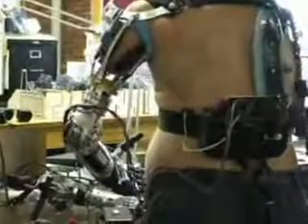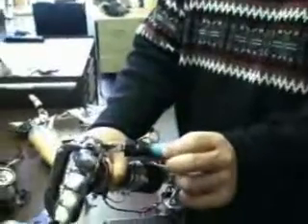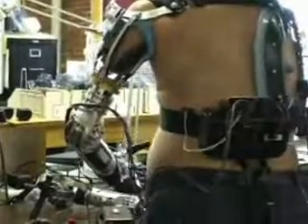These sophisticated electronics also allow sensory feedback. We have a small sensor in the thumb that sends a signal to one of the microprocessors.